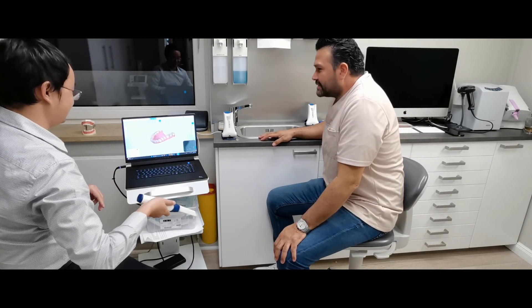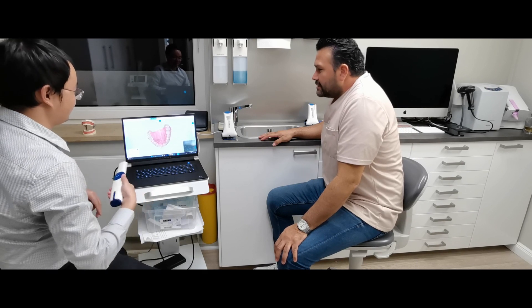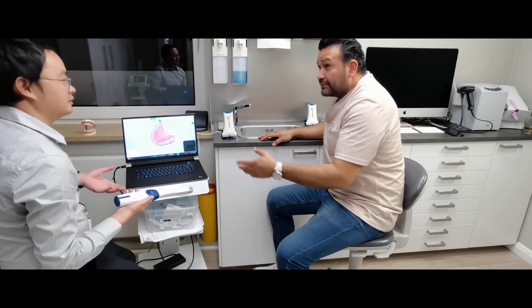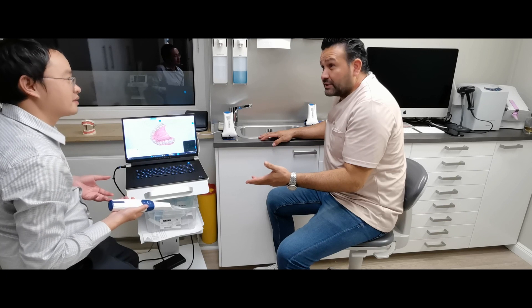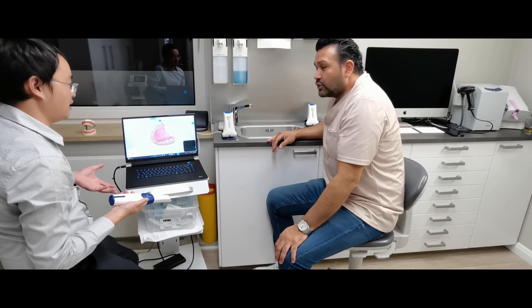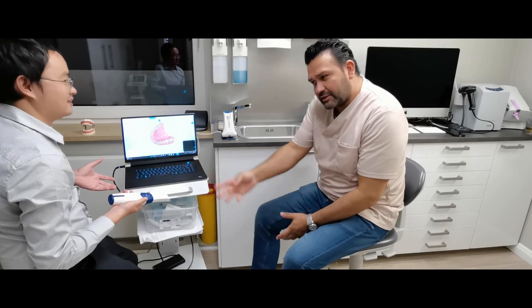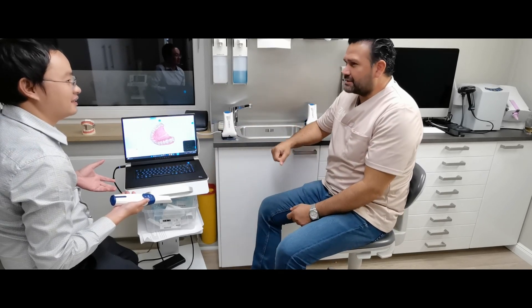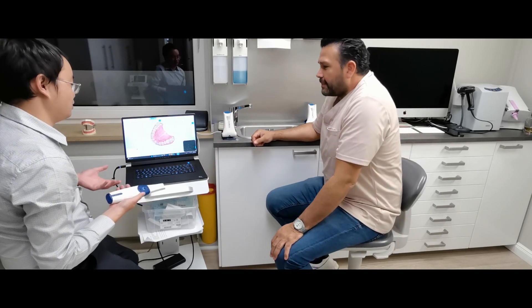So normally it's not the plan to fall from the ground, but in the case it could happen. Just in extreme cases, normally if it falls down, you're going to keep it. It's not going to fall down like this. Yeah. Okay. Just in case.